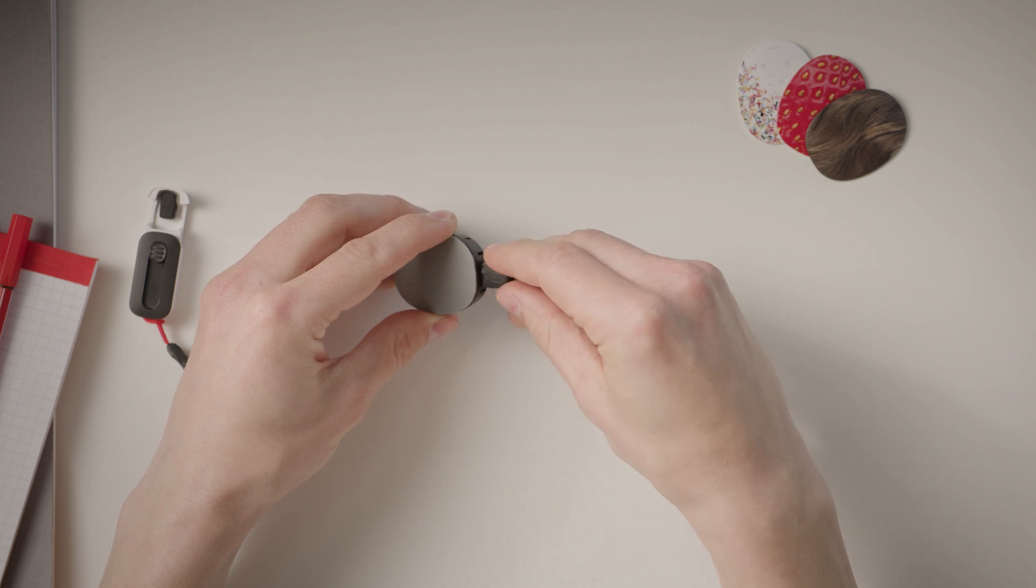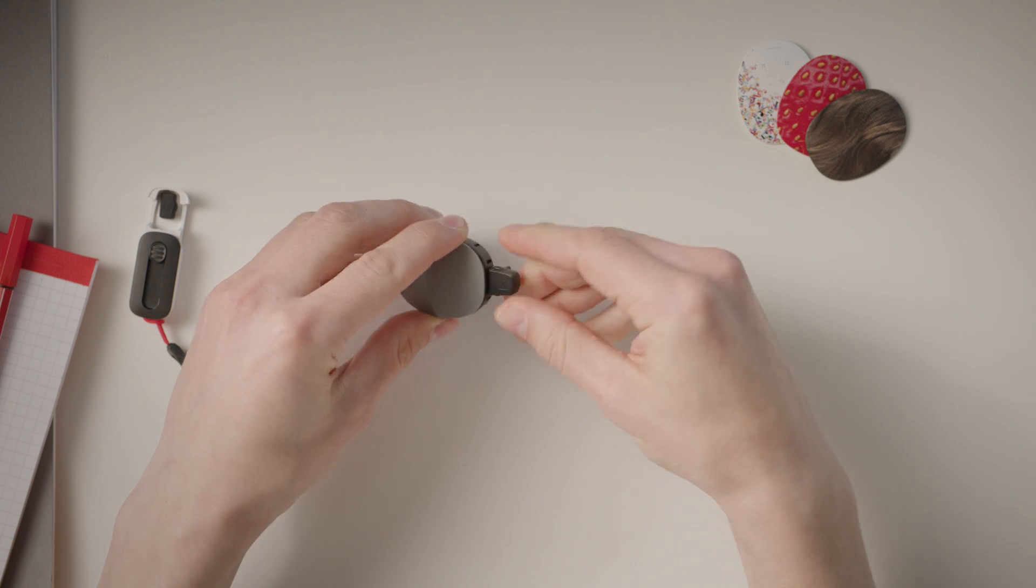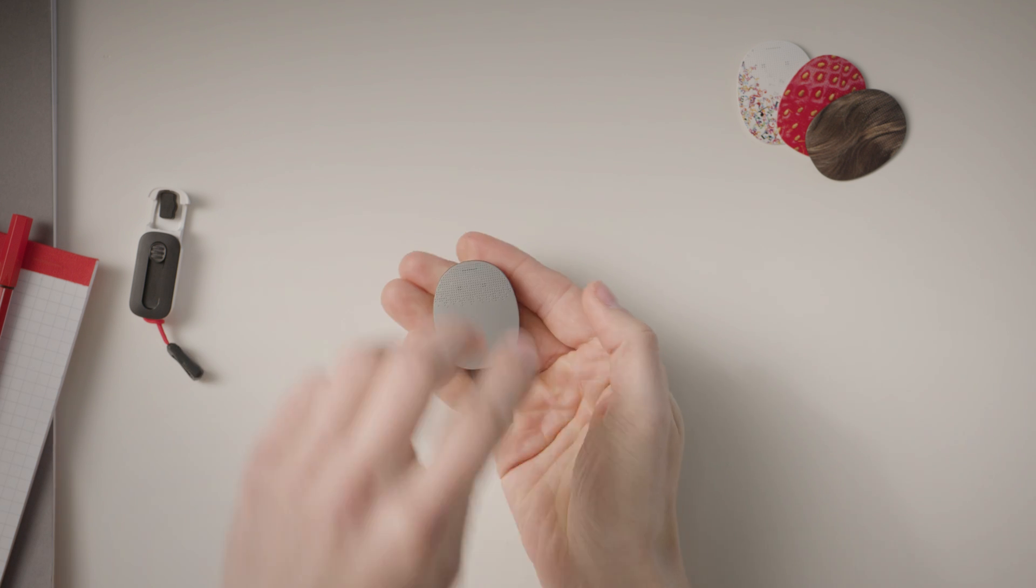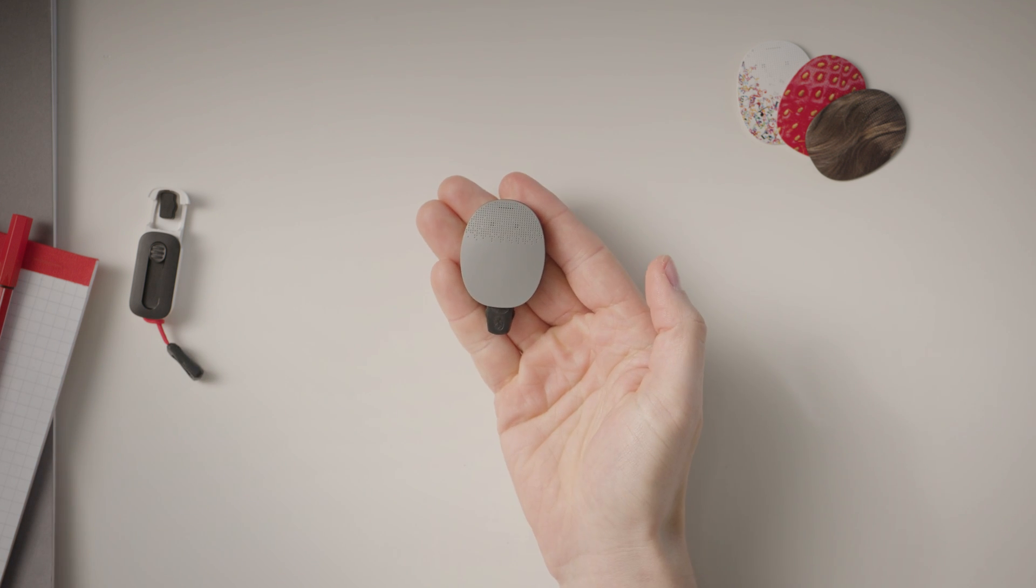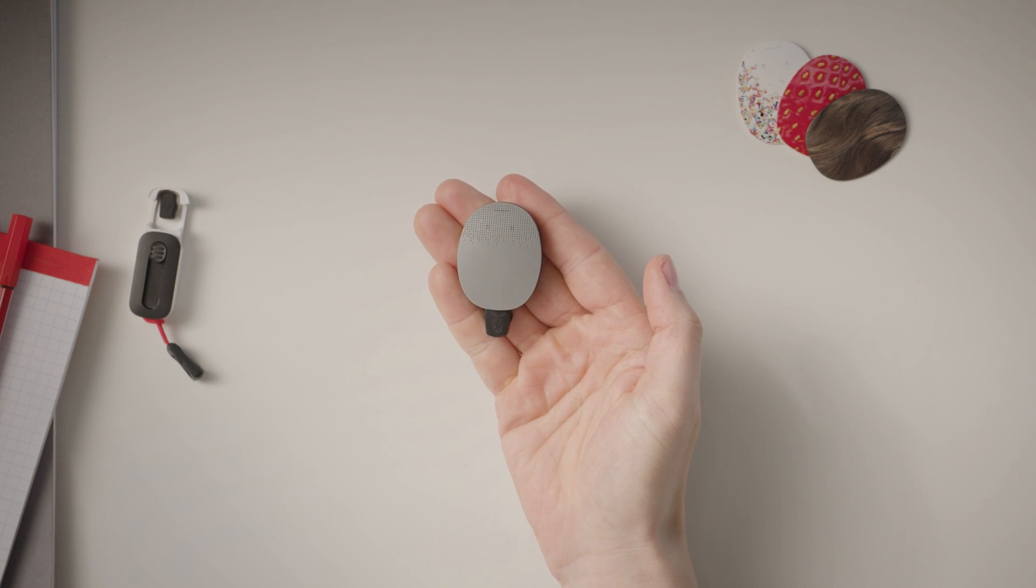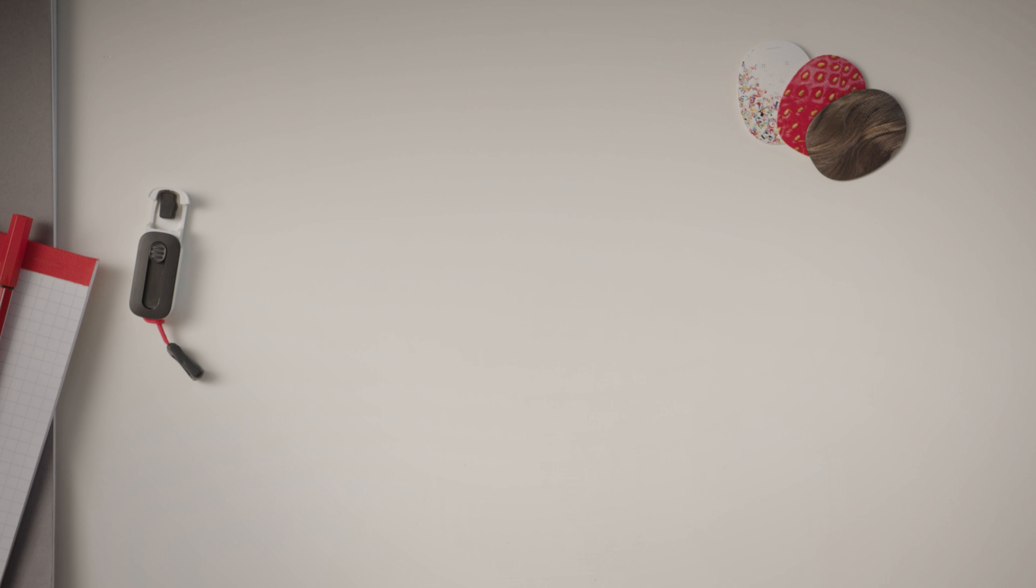Please note that the AudioStream adapter is not suitable for young children under 3 years.